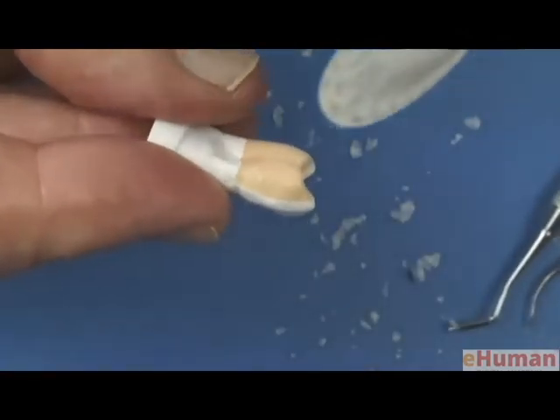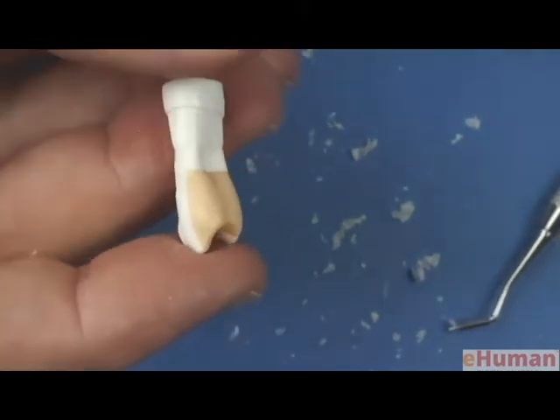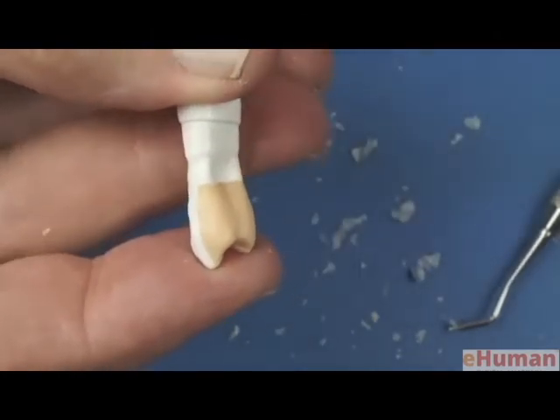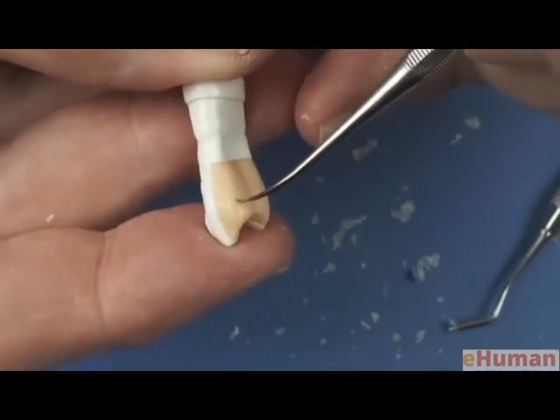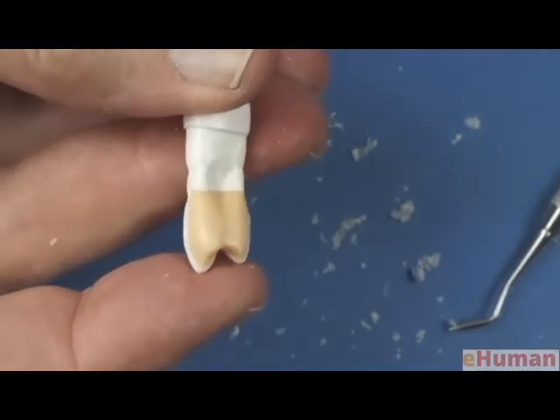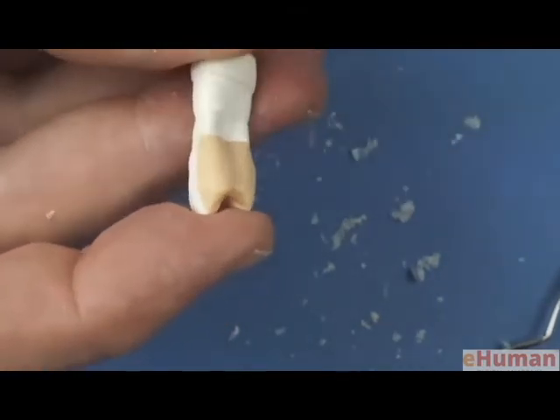And there's still a little depression from where I scratched that surface. So again, you can take the fine instrument. And if you notice, there's one of these that has a very sharp point. And this really is not good for adding wax, but it's excellent for smoothing areas where you've scuffed up a surface or have a notch in it like I just did. So that real sharp end's good for smoothing the wax.